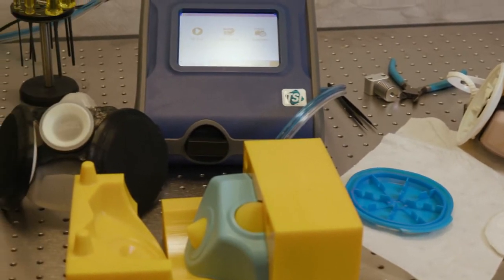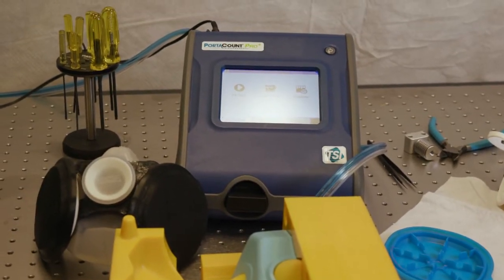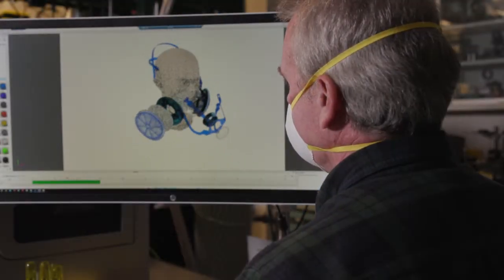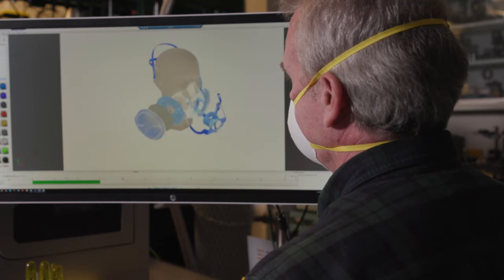Another key feature of this mask is every component can be removed. This mask is fully disassemblable and then can be reassembled. Each part of the mask can be cleaned independently and also replaced independently.